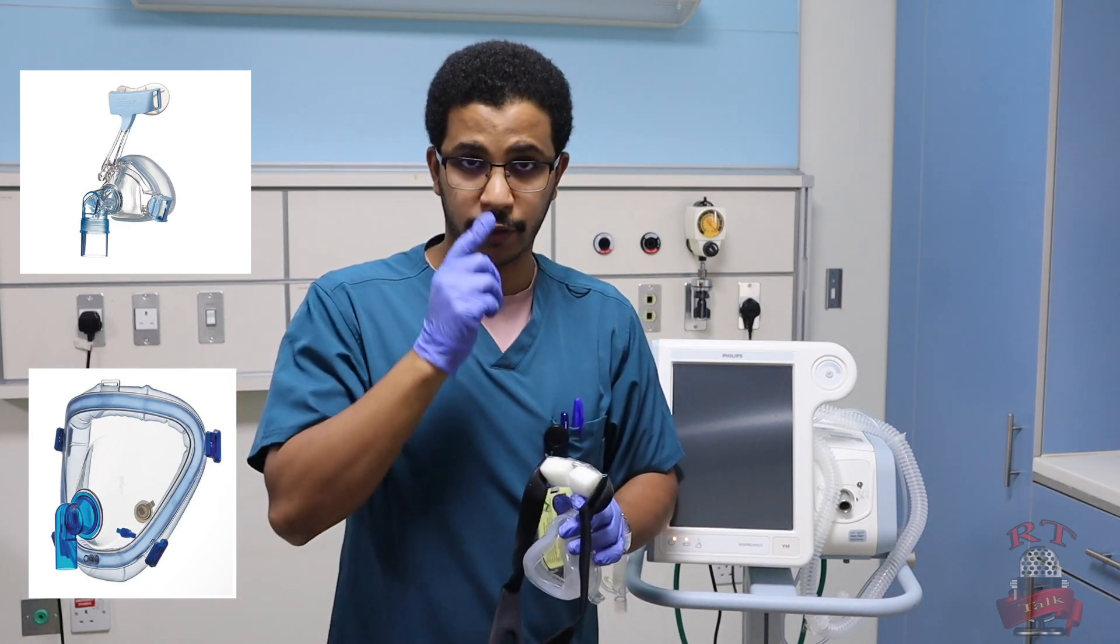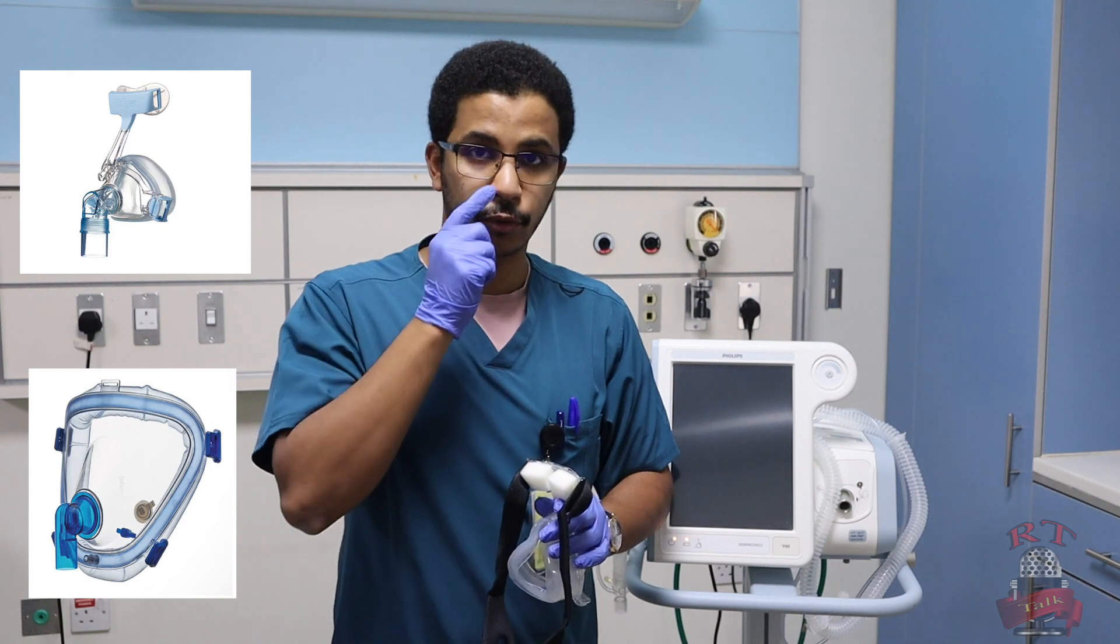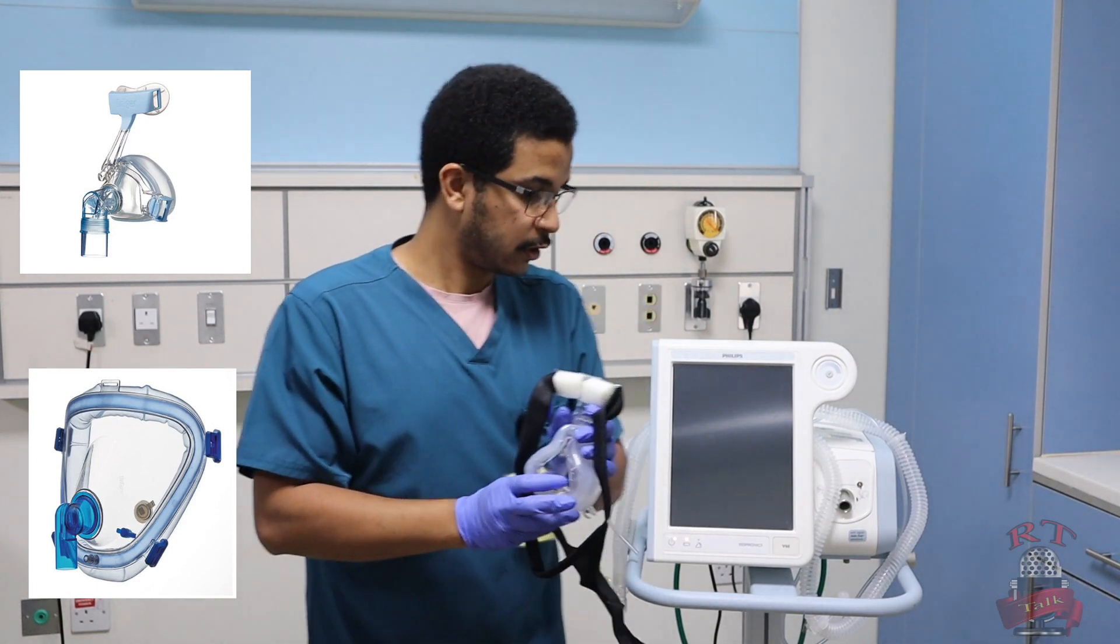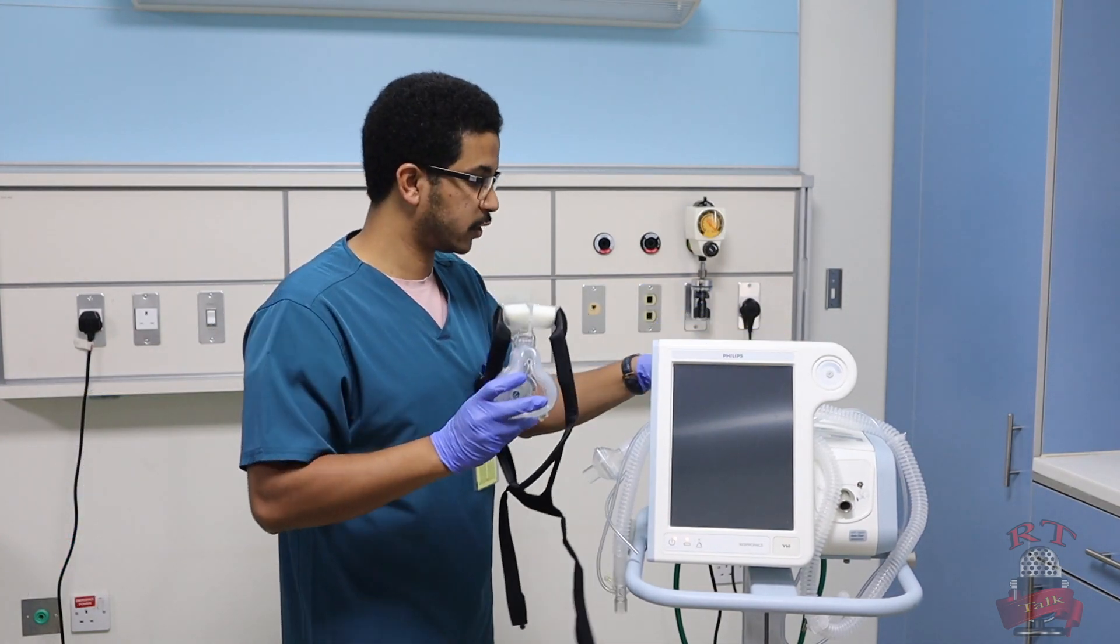There are three types: one for the nose, number two for nose and mouth, and number three is a full face mask. So now we bring the machine and the interface we will use.